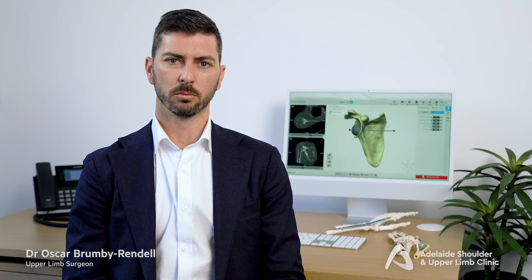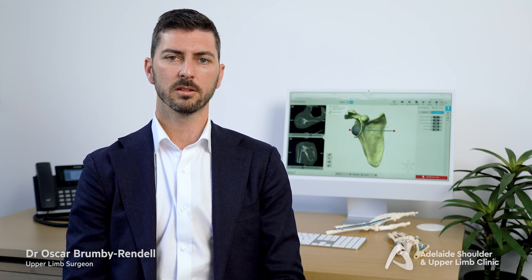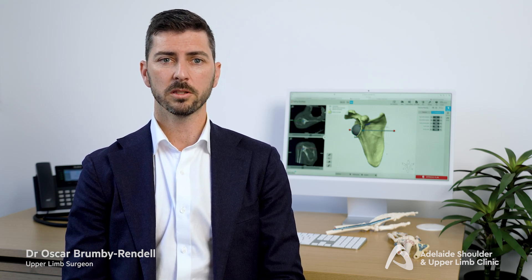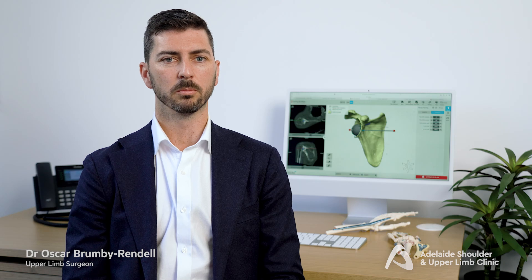Every patient considered for shoulder replacement will have a CT scan that is then uploaded into specialised surgical templating software. This software allows the surgeon to choose where the best spot is to place the joint replacement components.